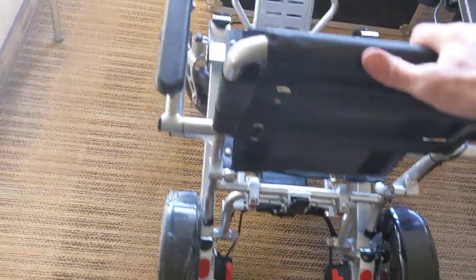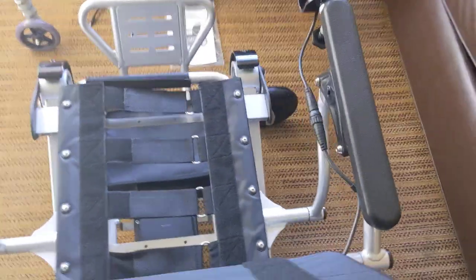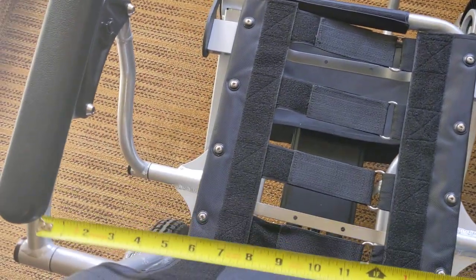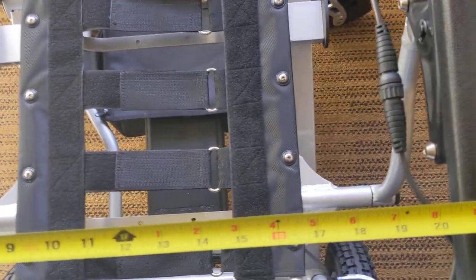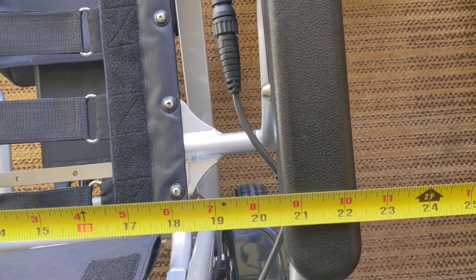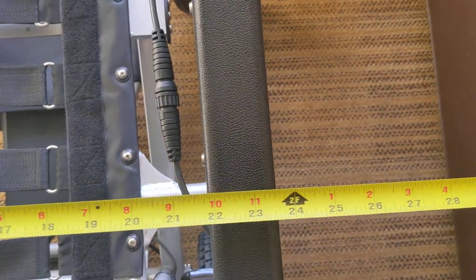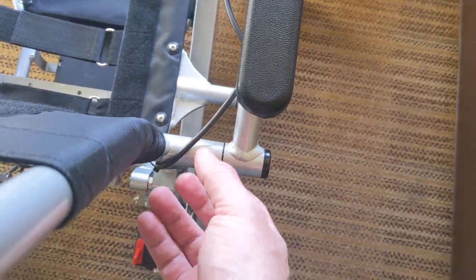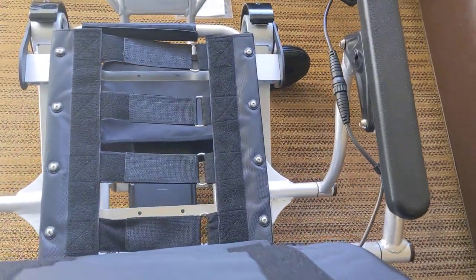The chair does just about anything that I would like it to do. A lot of people ask, what is the difference between the Electra 7 and the Eagle? There is only one difference, and that is the space in between the armrests. The Eagle has just under 19 inches of space. This has just a fraction under 21 inches of space, and the overall width of the chair is 24 inches. We do have an armrest spacer kit that adds another 3½ inches of width.